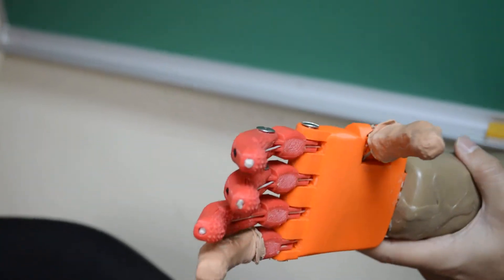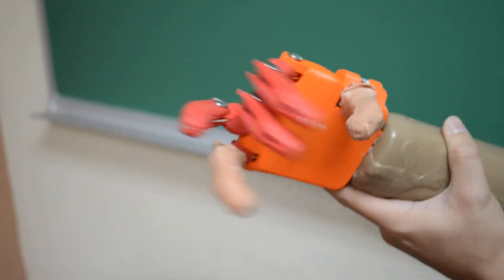And now, this allows me to do the fine grasping position, as you can see here. This is for very precise grasping.